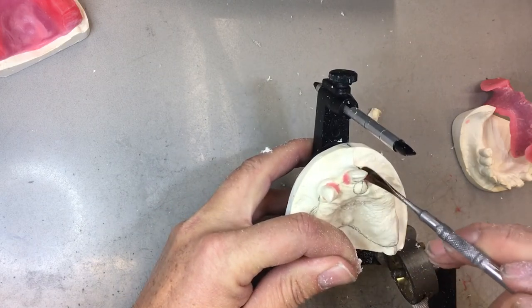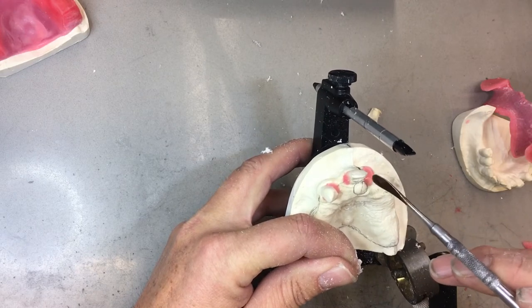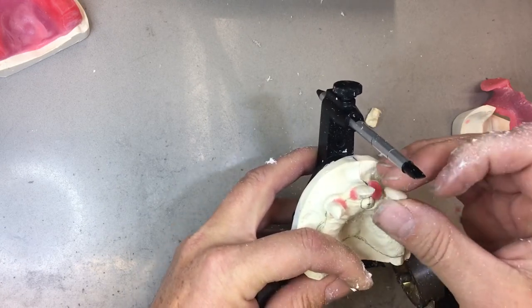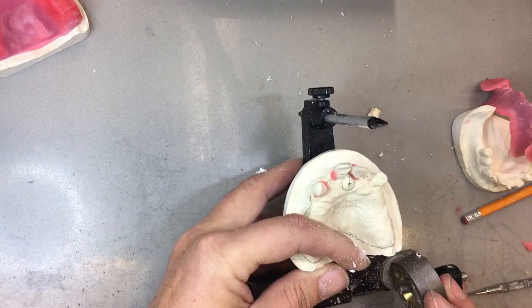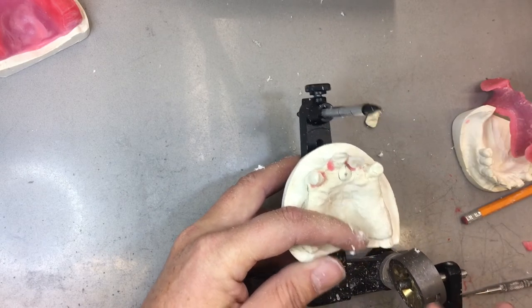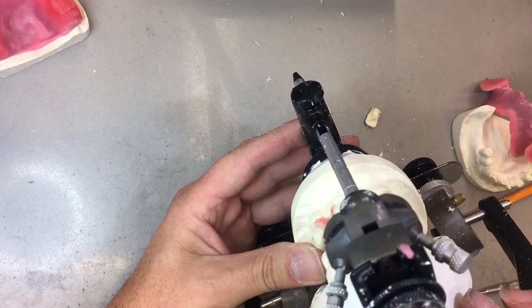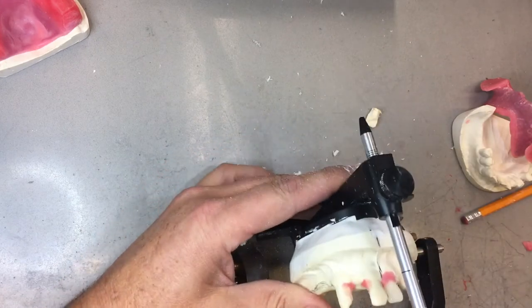I've outlined the incisive papilla. We know by average that the labial aspect of the central is around four or five millimeters from the midpoint of here. You can see that I'm bringing this way in. I don't know if this is going to be a class one or a class two depending on the overjet, but I can already see from below — I think it's going to be a class one. By bringing this in here — step one finished.